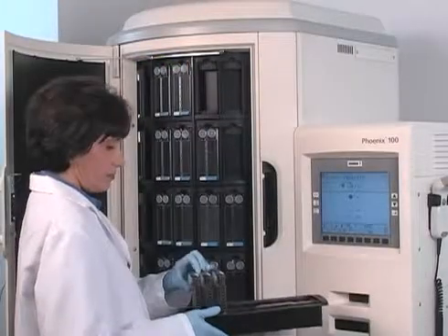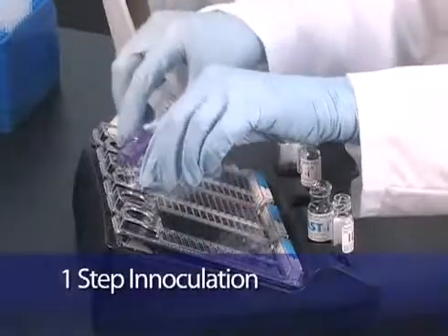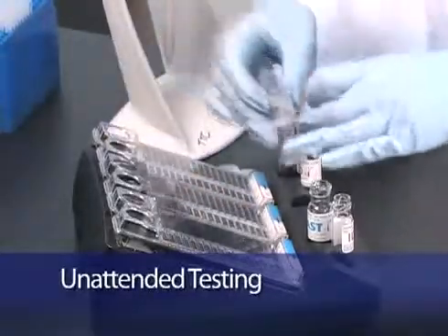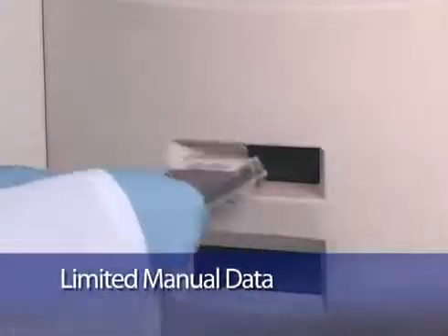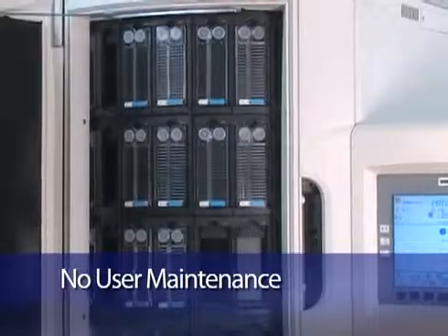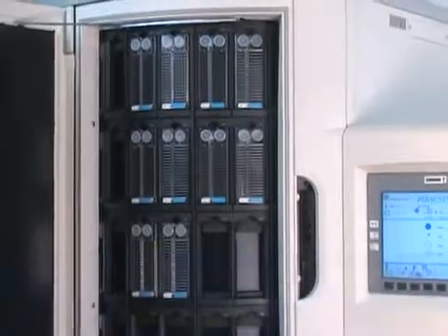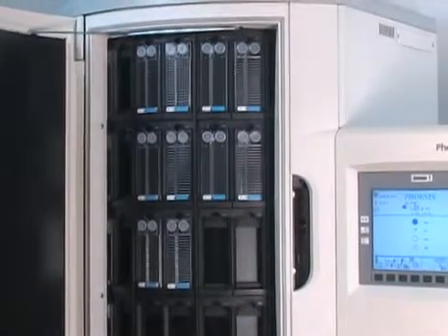A standardized one-step inoculation offers continuous unattended testing and same-day results, limited manual data transaction, and no user maintenance. The BD Phoenix system is designed to provide years of trouble-free service.